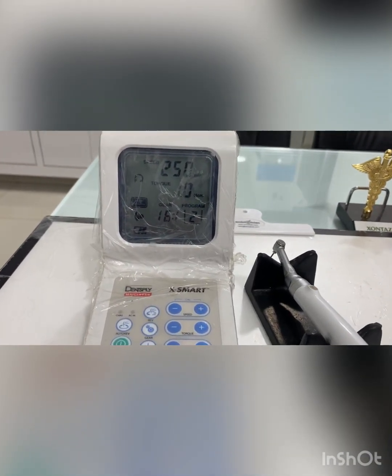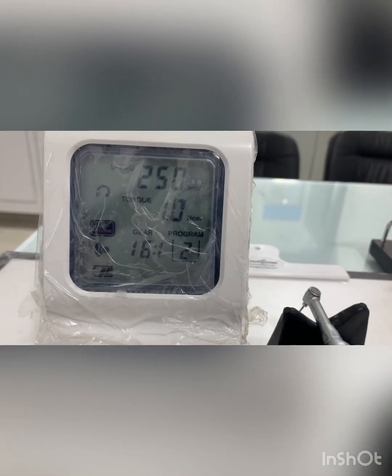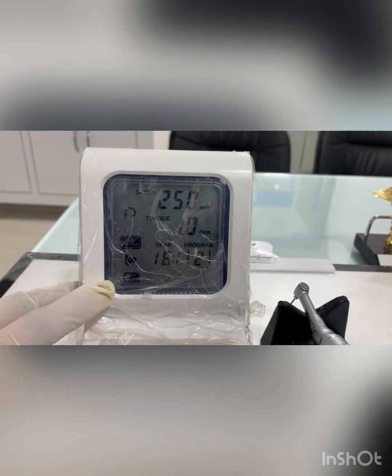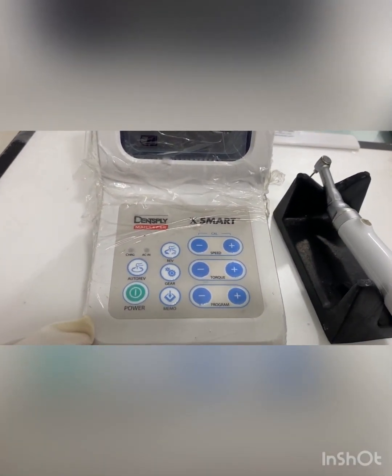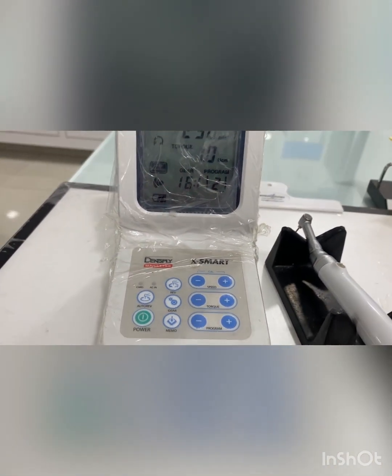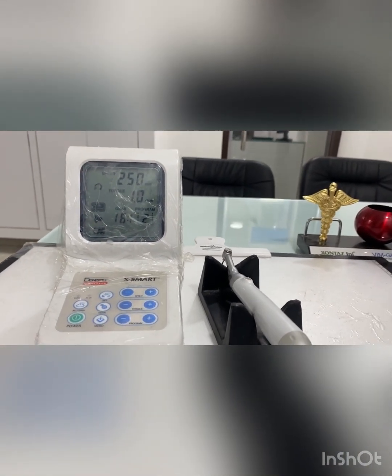On the LCD panel you can see speed, torque, gear ratio, program, and a few symbols. Speed and torque are the most important parameters of the endomotor.